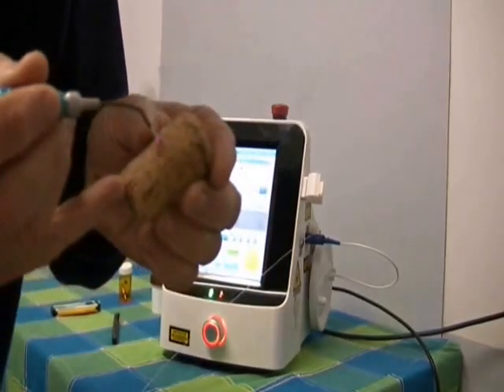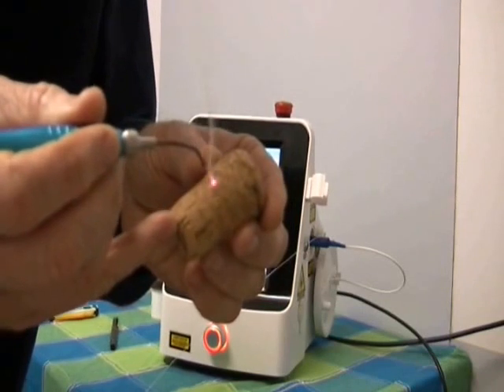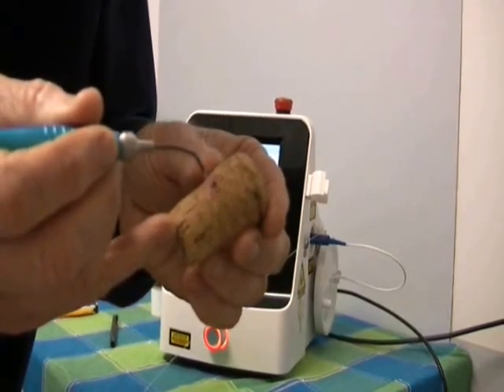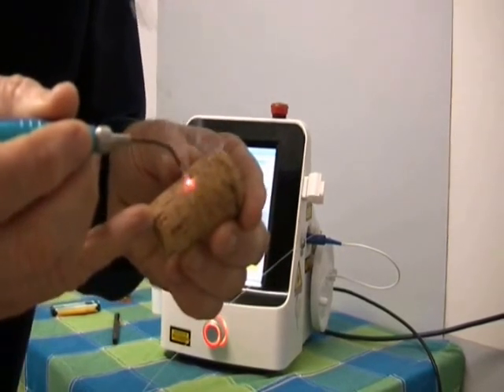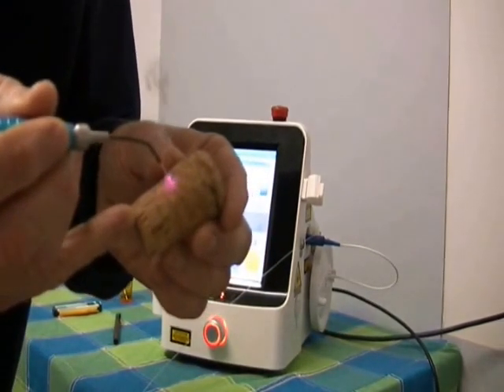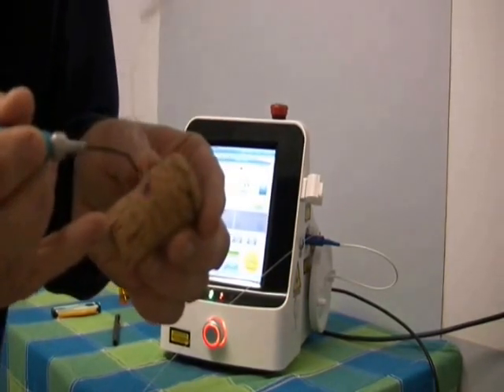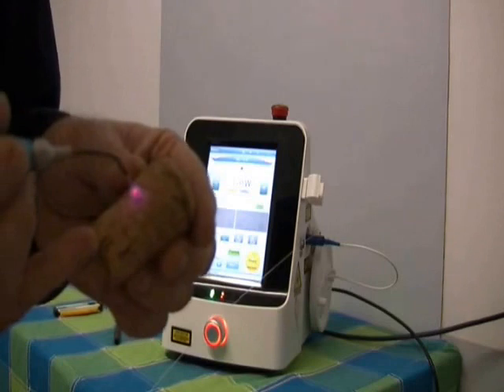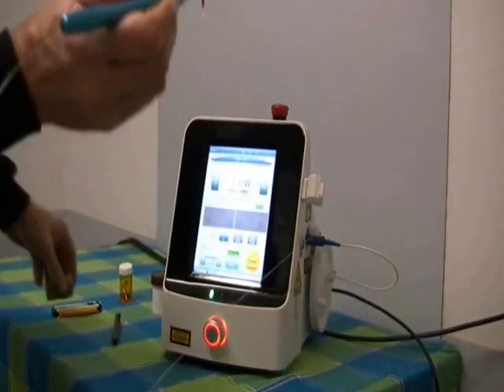Now you'll find — you can see that flaring going on. It goes from that red light to shining. You'll find that it's actually going into the cork a lot faster now than it was before, because as it carbonizes it becomes more effective. Dental tape is even better, but that's — turn it off. That's it carbonized and ready to cut.